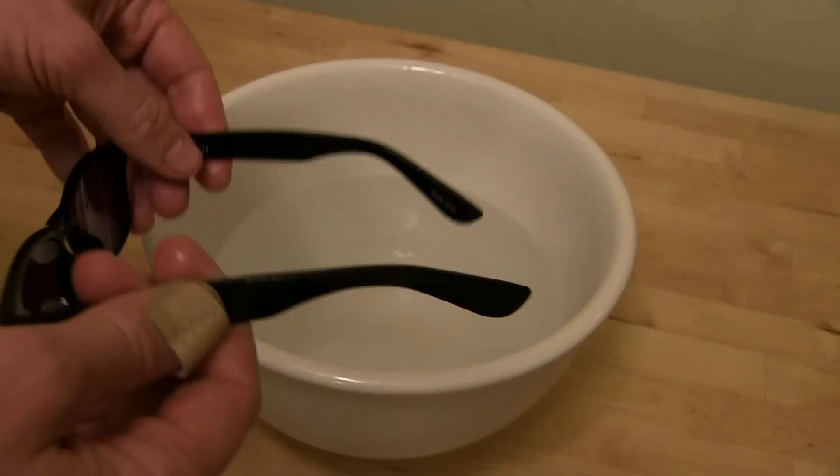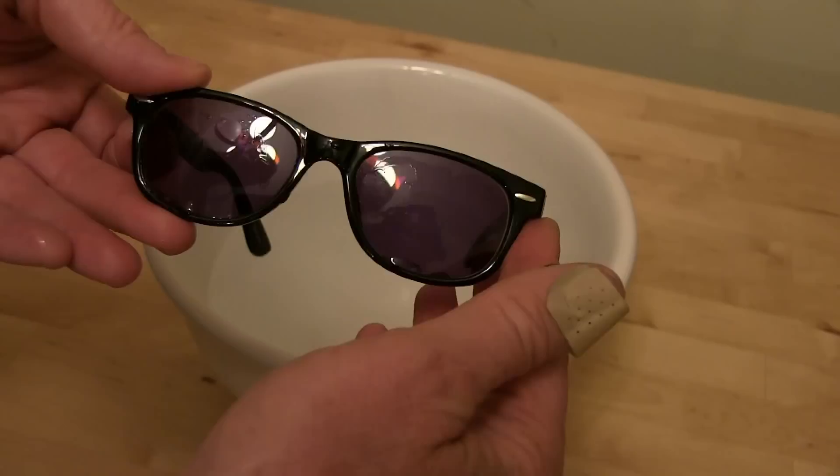That's all there is to it. And the same thing with the frame — if you want to change it, you want to be careful that you don't misalign the lenses and cause yourself eye damage. Keep them parallel to your face if they're prescription.